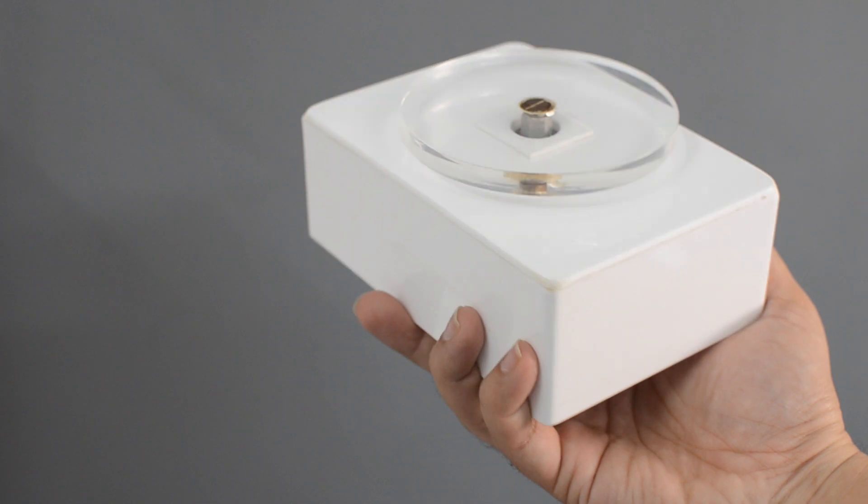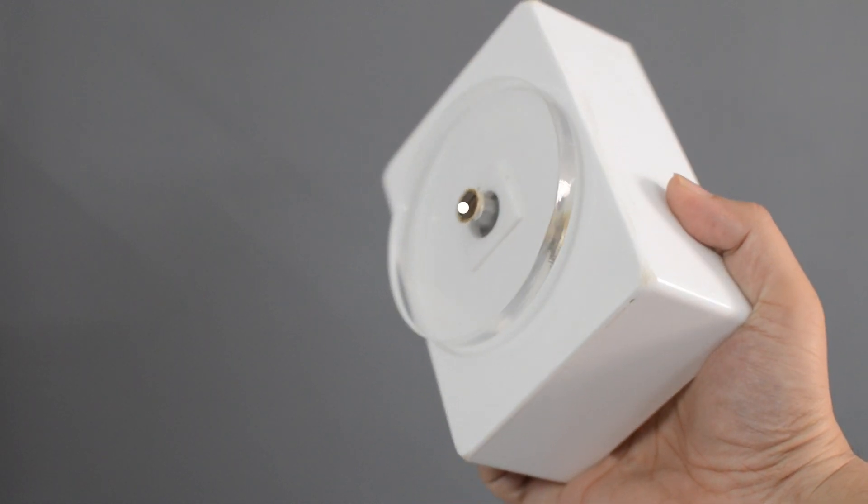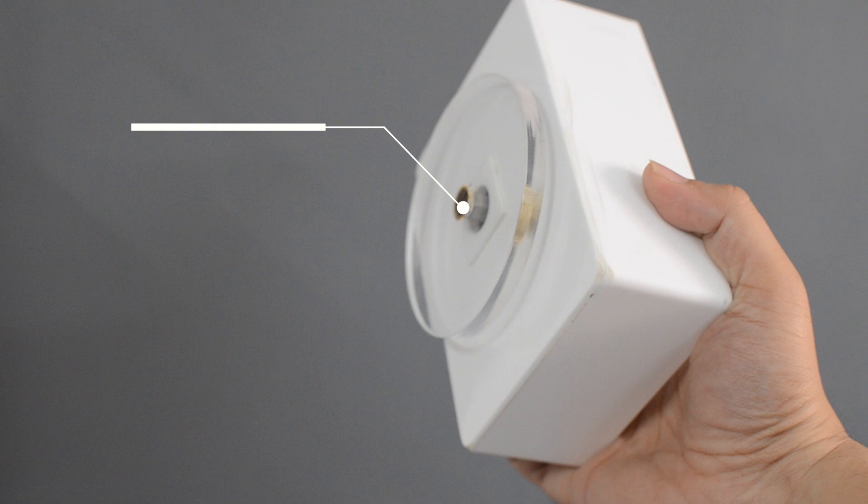Lastly we have the extremely sensitive Uroflow meter sensor. This is easy to maintain and weight based with the sensitivity of 0.5 ml per second.